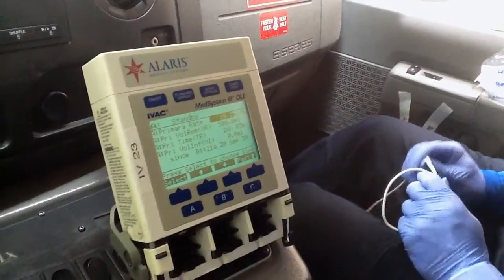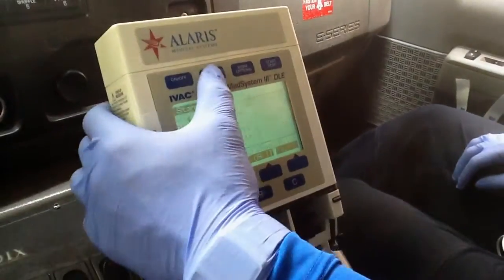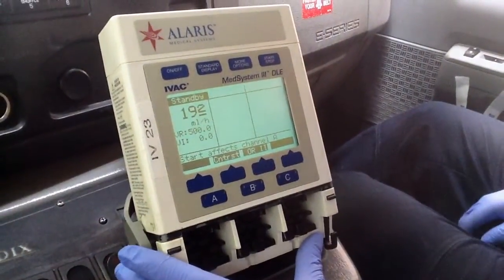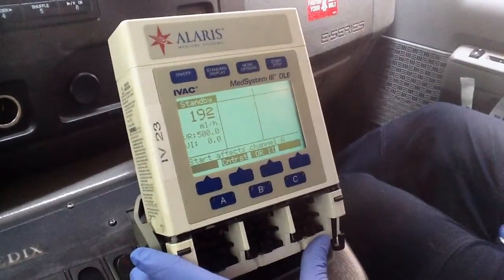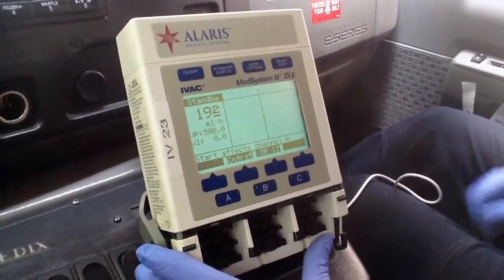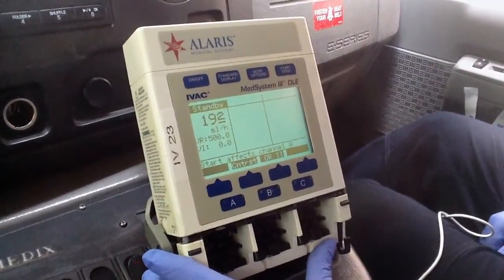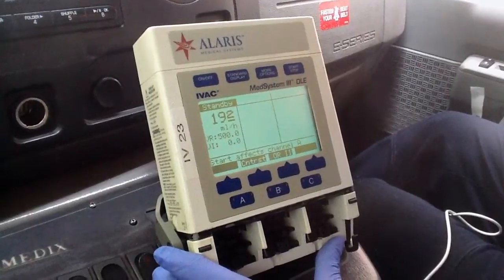In the previous videos I talked about mLs per hour and how to set that up. In this presentation I'm going to show you how to set up the drug calculator, because mLs per hour is not a true drug dosage. For any drugs you should have either mLs per hour or micrograms and so forth — not just mLs per hour, which is only appropriate when infusing fluids like normal saline or Ringer's lactate.